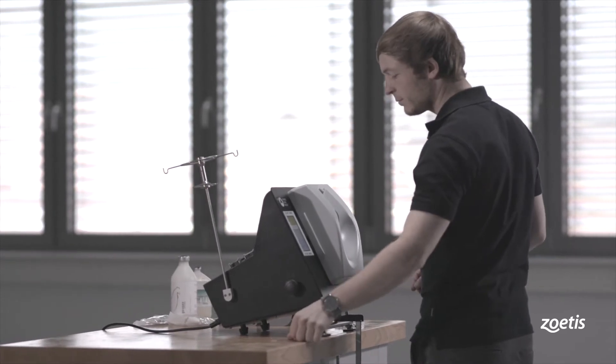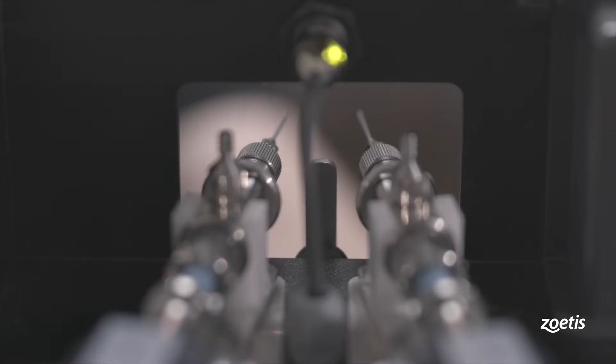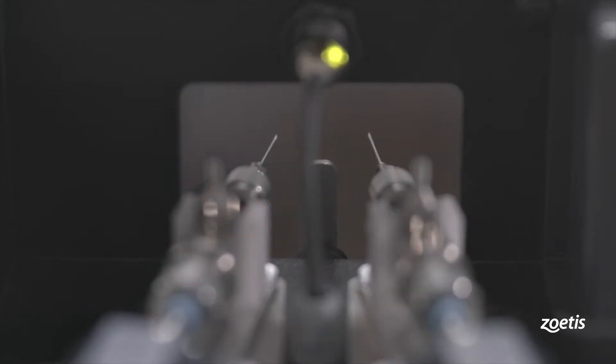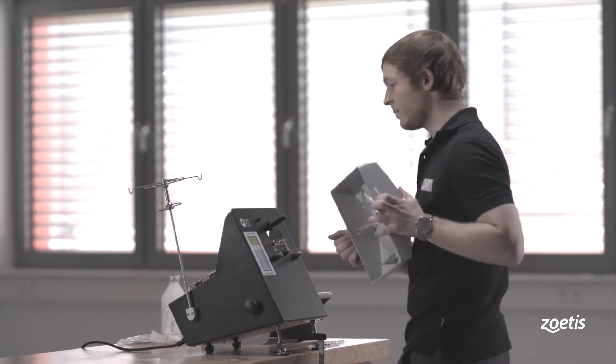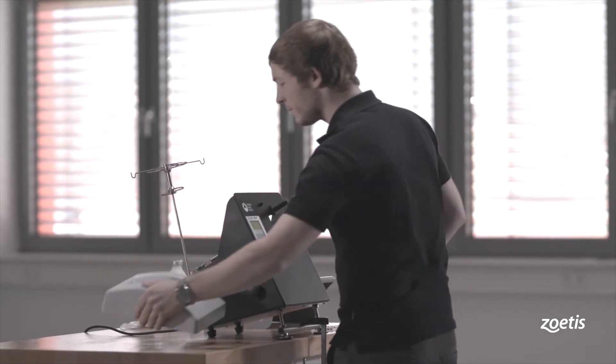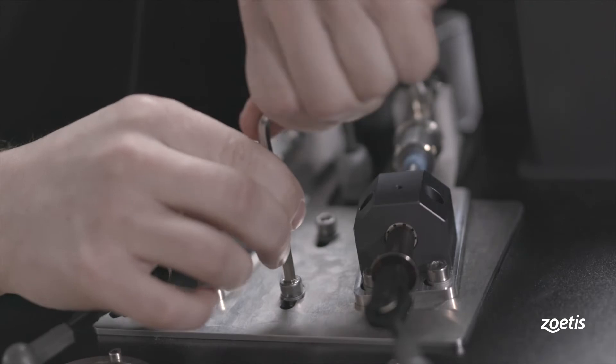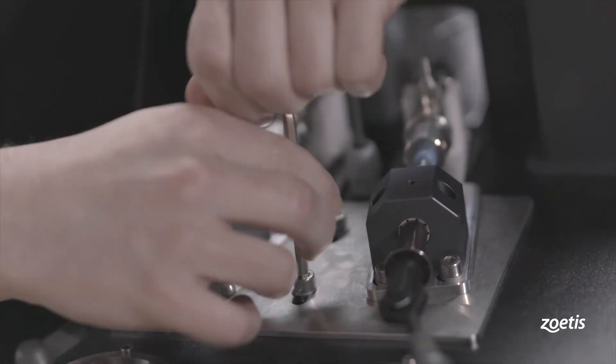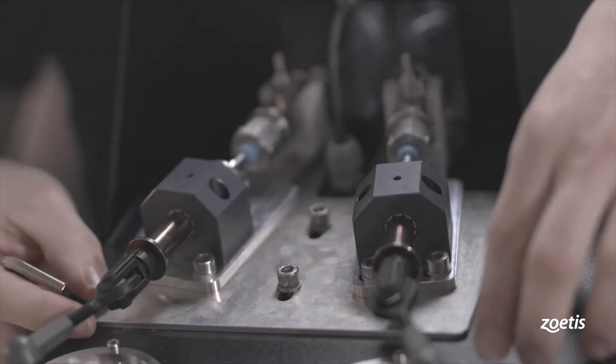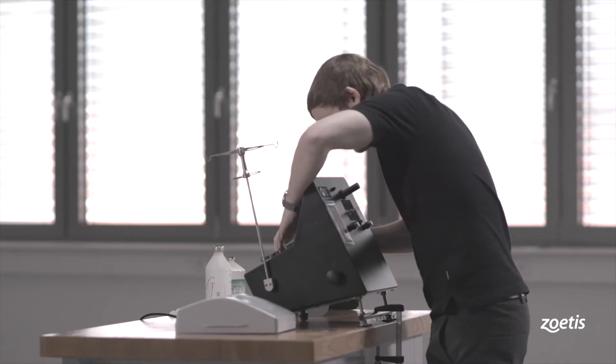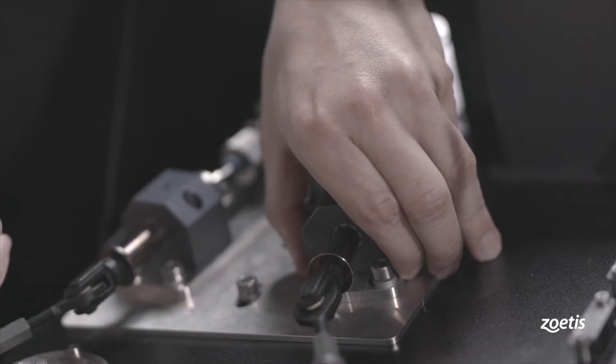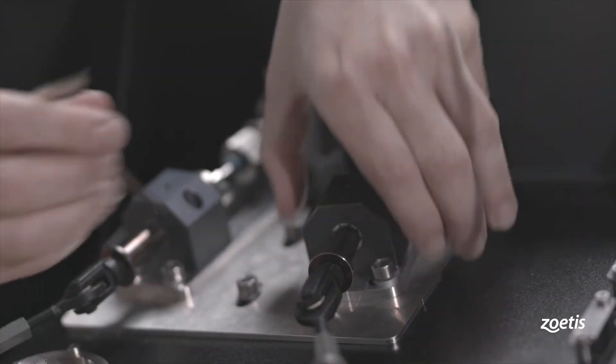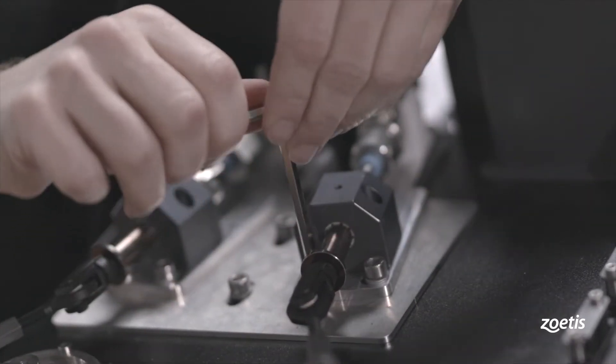Touch Needle Home to retract the syringe for adjustment. To adjust the injection angle and depth, detach the breastplate and loosen the screws of the syringe plate. Move the plate to change the angle and depth. After adjustment, lock the screws hand tight with an Allen key size 5.